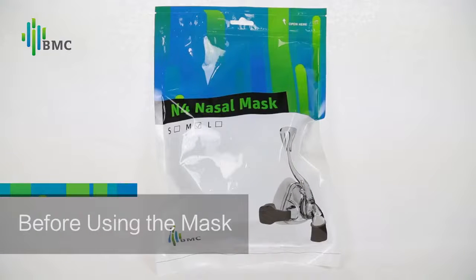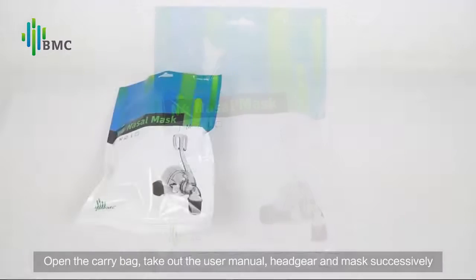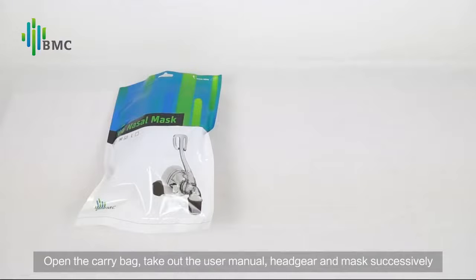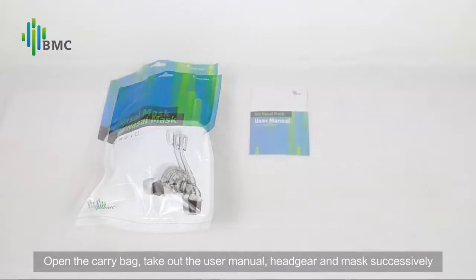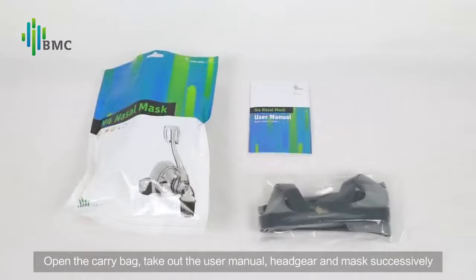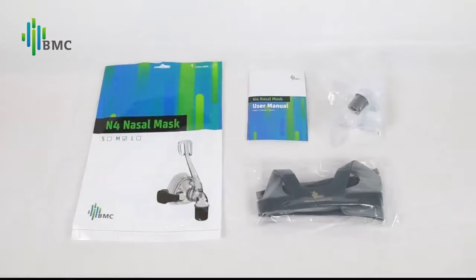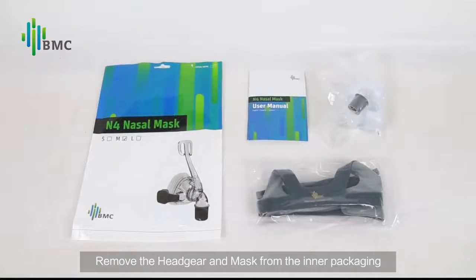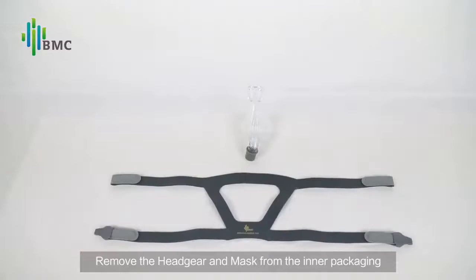Before using a mask, open the carrier bag. Take out the user manual, headgear and mask successively. Remove the headgear and mask from the inner packaging.